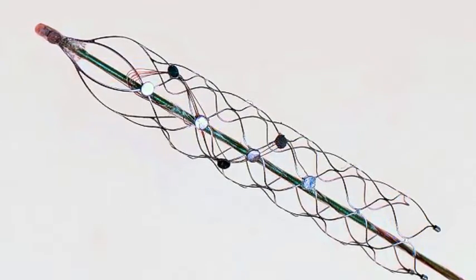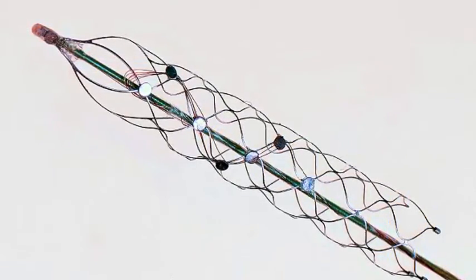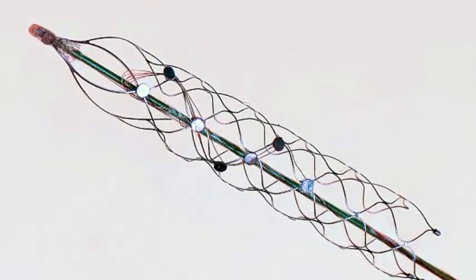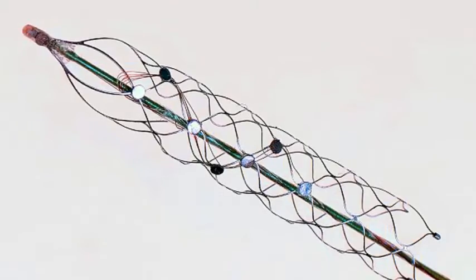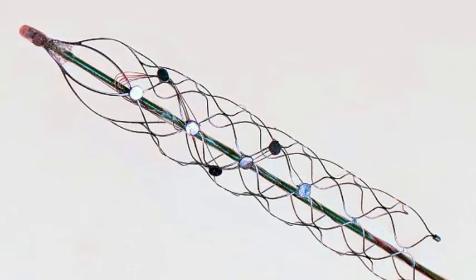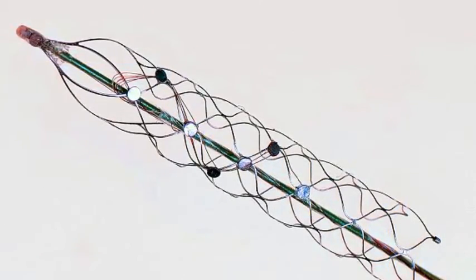More than 15 million people suffer strokes worldwide each year, with a third of victims left permanently disabled. However, there is fresh hope for those left paralyzed after researchers developed what they have called a bionic spinal cord.